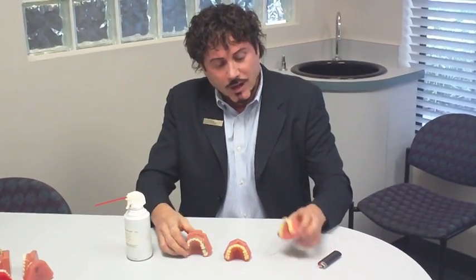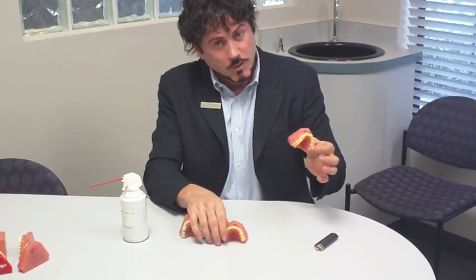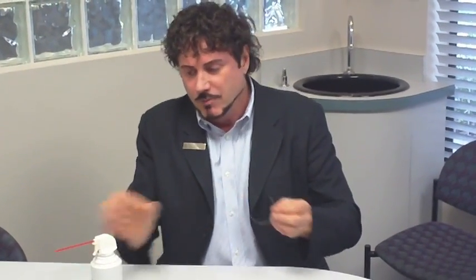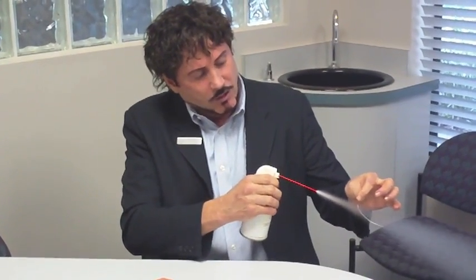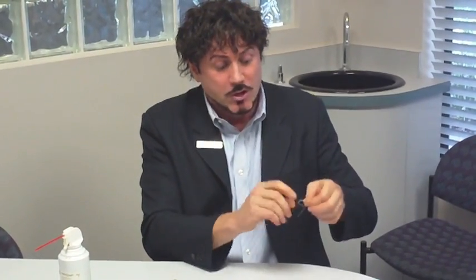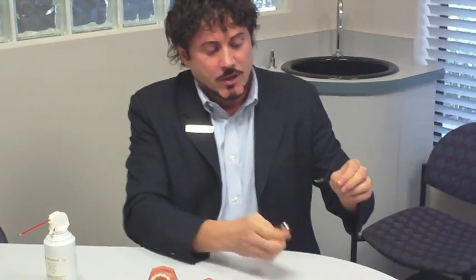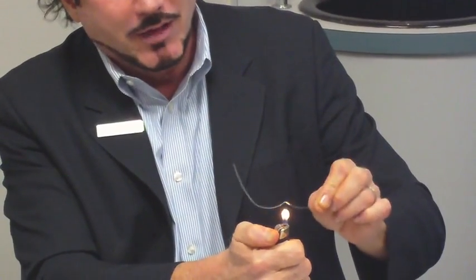We actually engage the wire into the brackets. If someone has very crooked teeth, like this situation right here, we use the memory of the wire — also called memory wires — to make their teeth straight and lined up like this. We take this nickel titanium wire and freeze it, putting some spray on it. You can see it's already getting soft, becoming dead soft. Therefore, we can put it in your mouth and it doesn't hurt at all. But during the day, the heat of your mouth will warm up the wire, and you can see how it bounces back to the exact same shape.